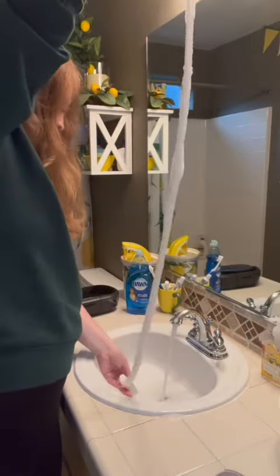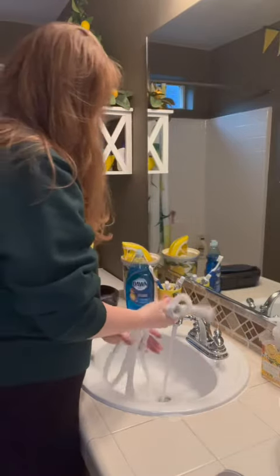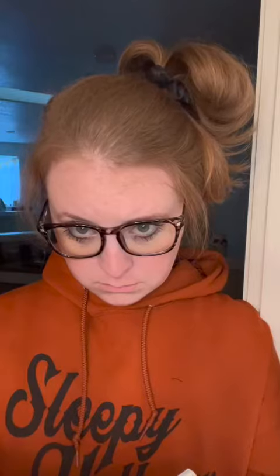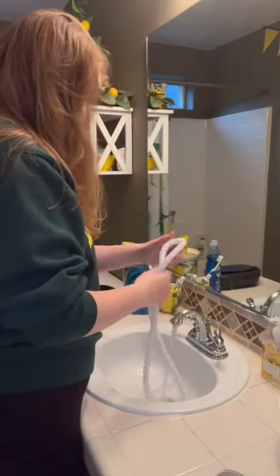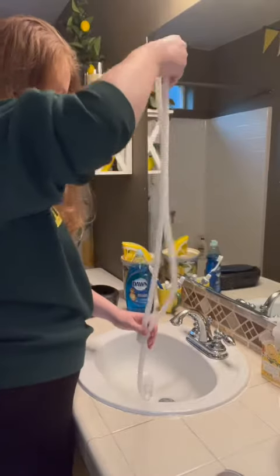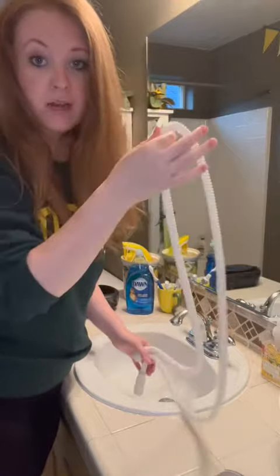Maybe we're just going to rinse it out, get all of that water out, and rinse it off. Once you have it rinsed off like so, you're going to hang it up — hang it off the shower so it has a chance to dry and not flood all over the rest of my bathroom. That's it? That's all? That is how I clean my CPAP hose.